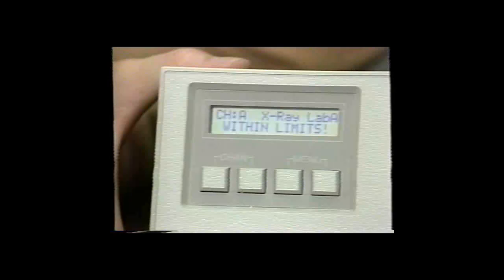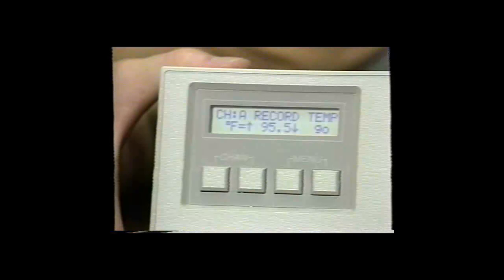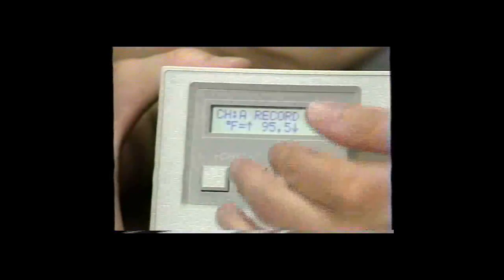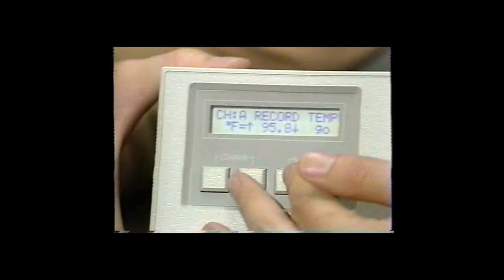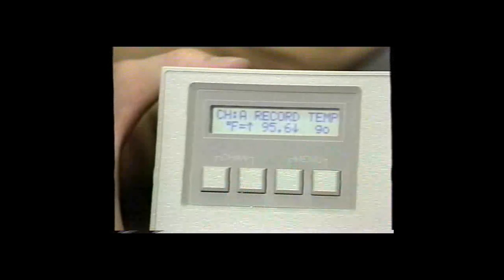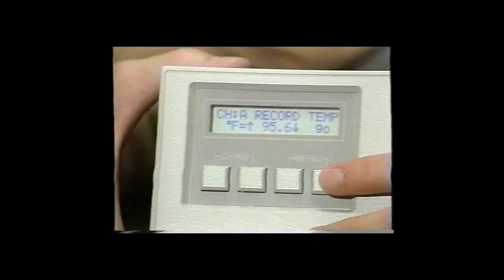Next, the densitometer will display if it's within limits, if references have been turned on, and will give you an option of adjusting the processor temperature. If the temperature has changed from the last reading, it's necessary to dial in a new temperature. Follow the keys directly underneath the arrows: one key causes the numbers to go up, the other causes them to go down. Once satisfied with the processor temperature, push go — the key directly underneath the go indicator on the LCD display.